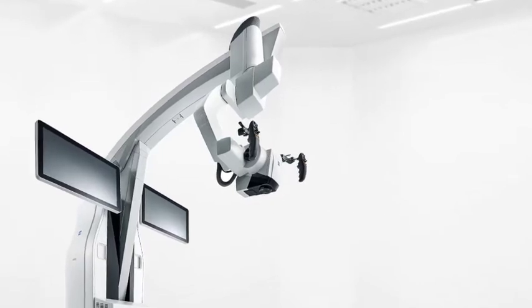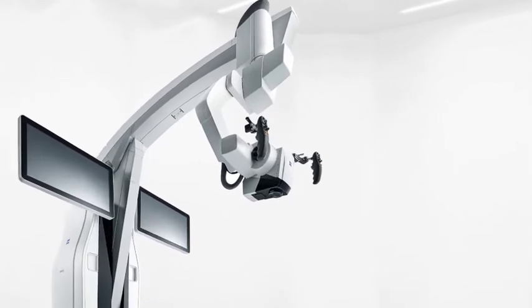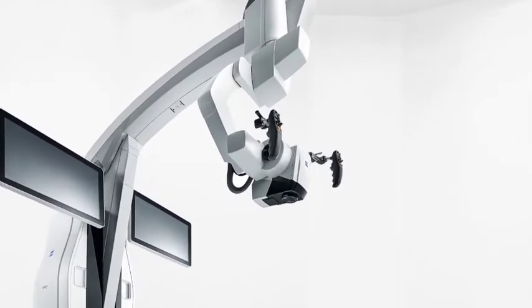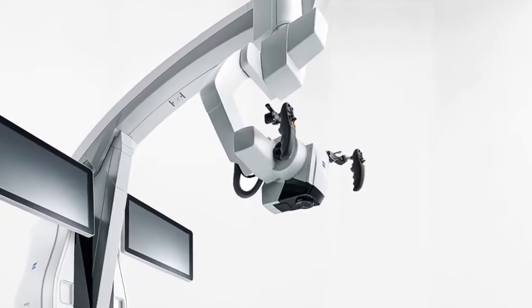Smart Drape with Vision Guard is designed together with ZEISS Kinevo 900, ensuring excellent viewing clarity and uninterrupted movement.